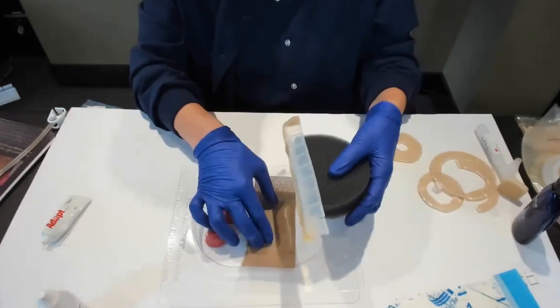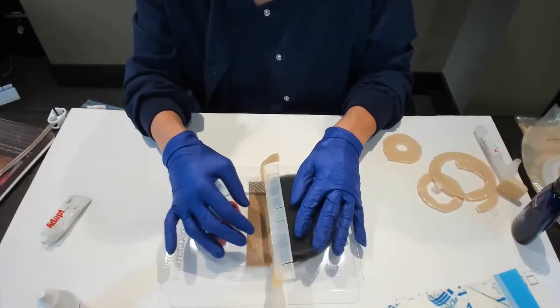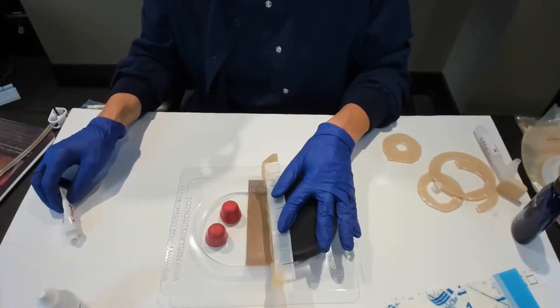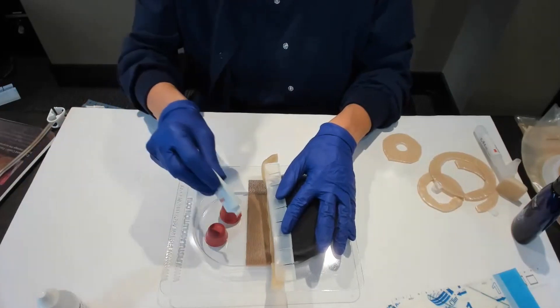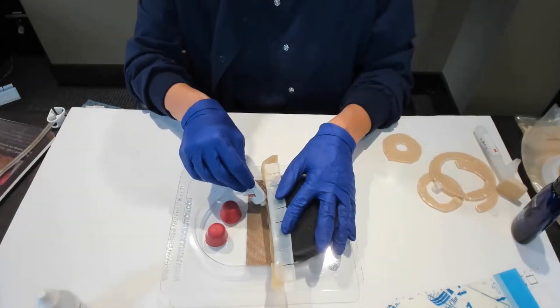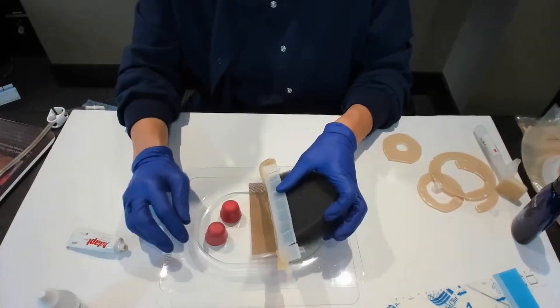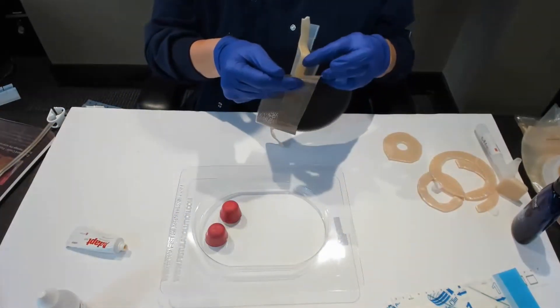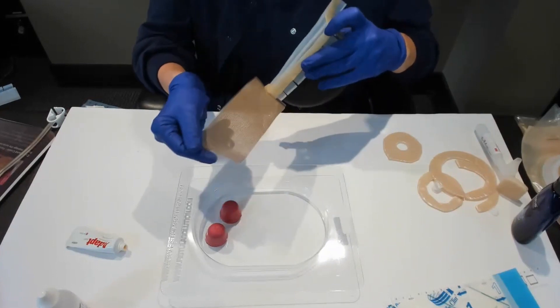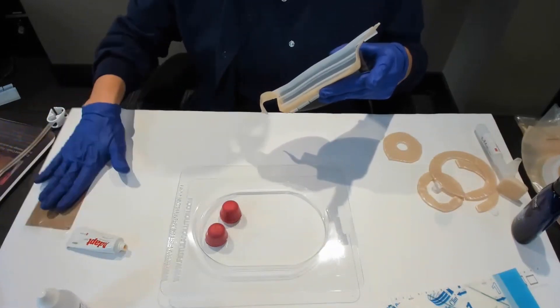You'll put this non-adherent down, and the reason it's so helpful is on those slippery wound beds. Then you can squeeze paste and it sits on this non-adherent and it gives you a great seal. I just can't simulate it here with the tray.